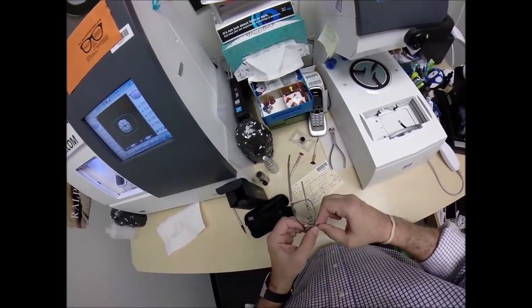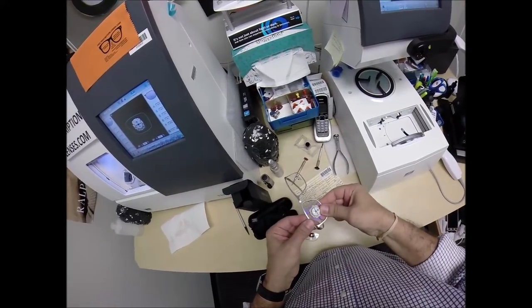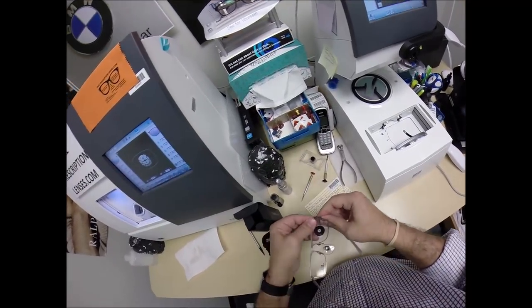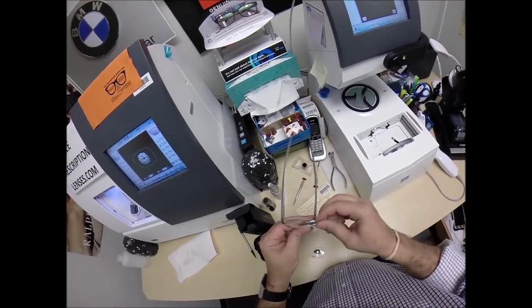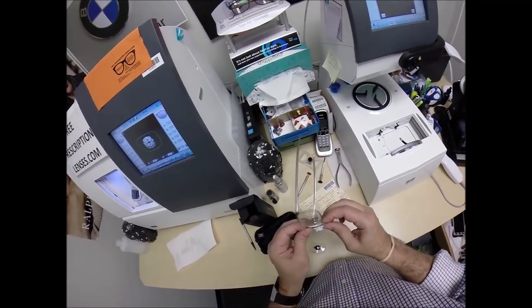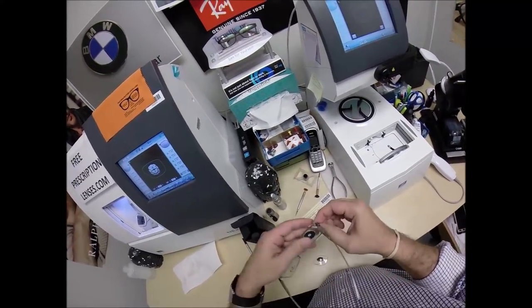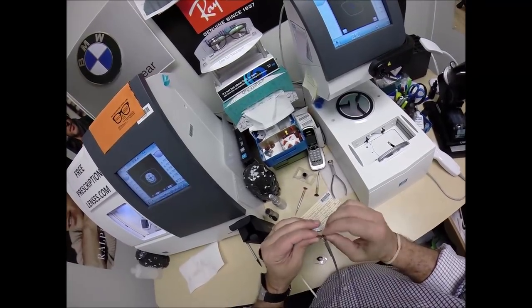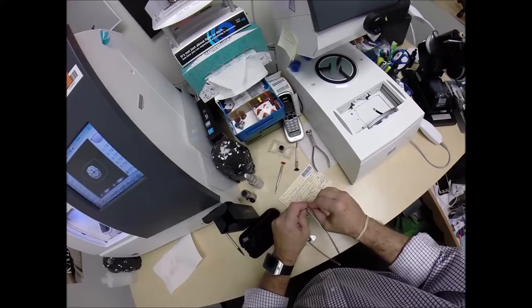This is not the easiest frame to work with. Did we get it? That is not your problem — that is my problem. I'm the one cutting the lenses and I'm going to make sure it is perfect. We are into the groove, but I don't believe it's going to close, so let me take some more off that lens.